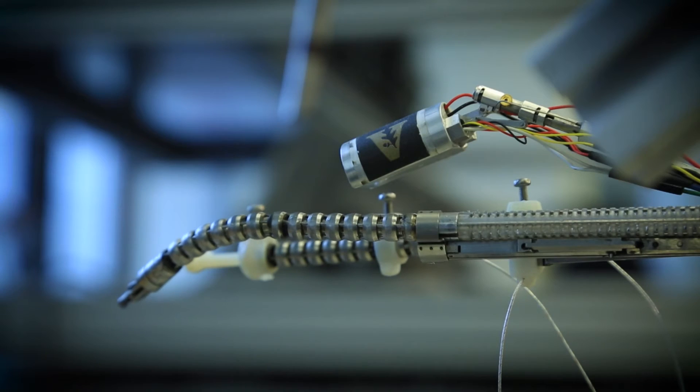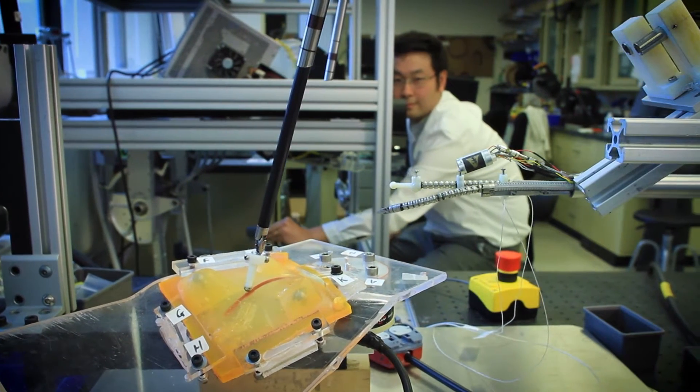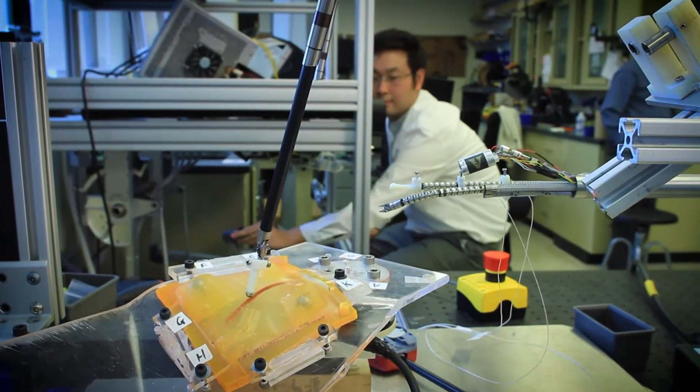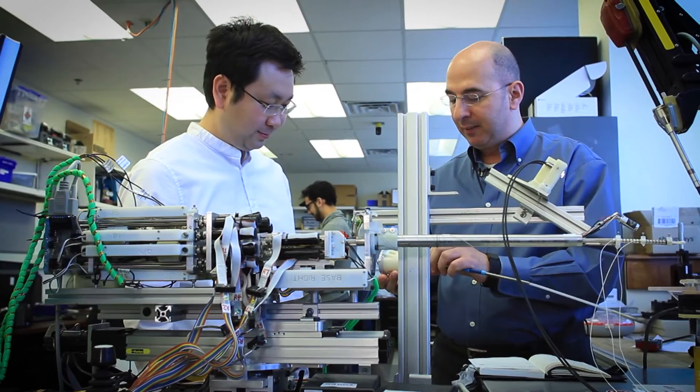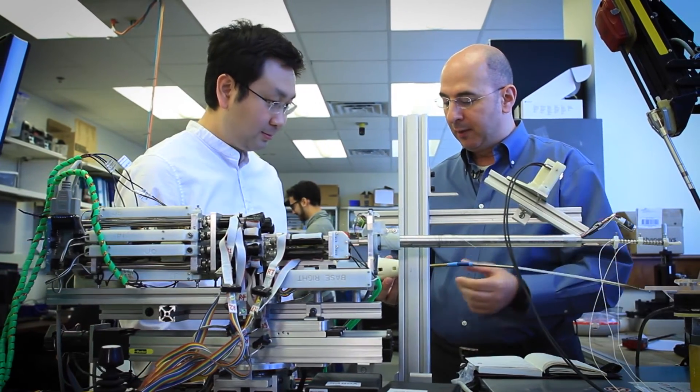This may look like a toy, but it's transforming the future of surgery with a sense of touch. I would like to be able to do things that appear simple to me when I'm doing it on a daily basis with my hands that are currently impossible to do with robotic technology.